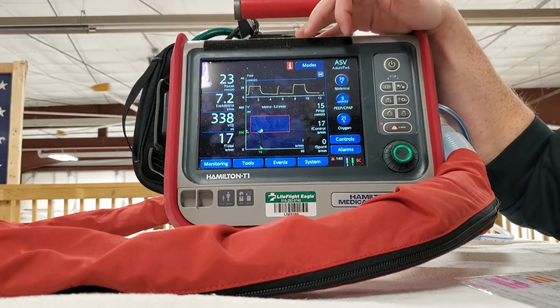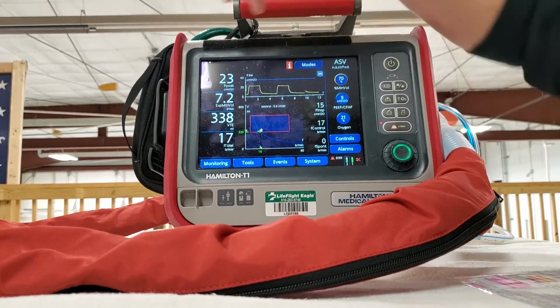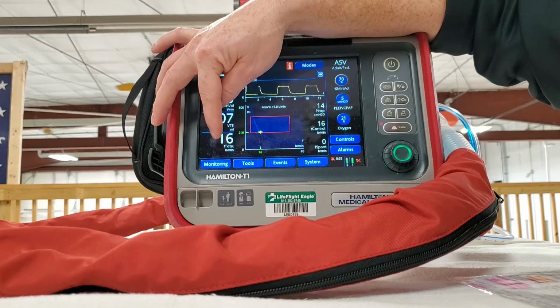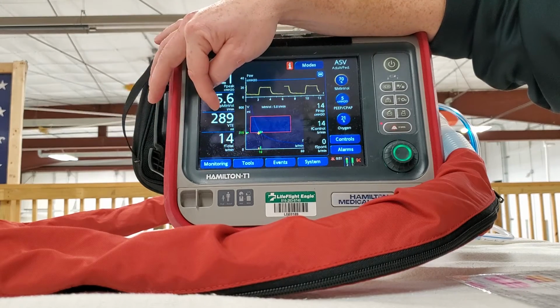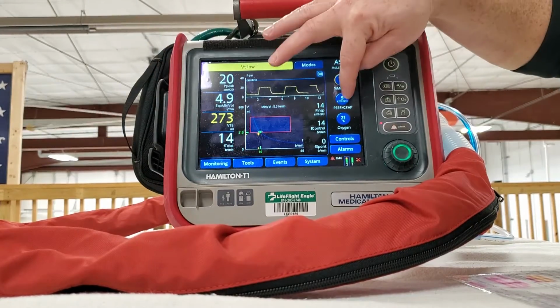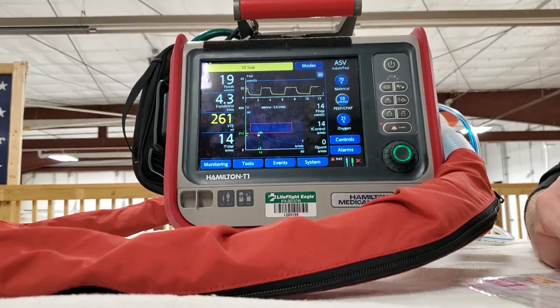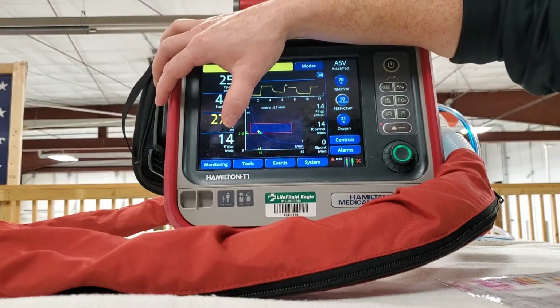But what I wanted to show you was percent minute volume. So COPD, asthma, obstructive patient, you use lower minute volumes, and as you can see, it lowered my tidal volume, lowered my respiratory rate, because the goal for them is to exhale. And so we don't need as much oxygen per se. We just need them more time to ventilate. So it did its calculation.